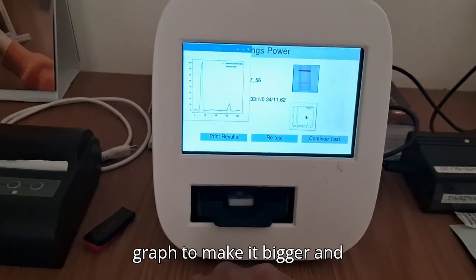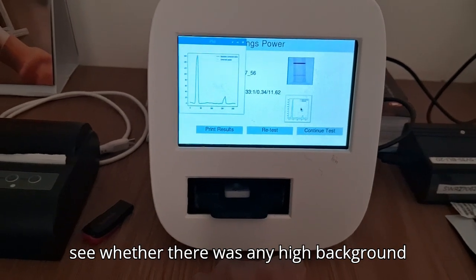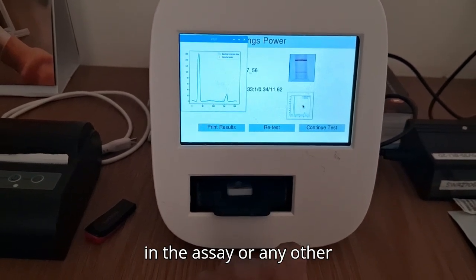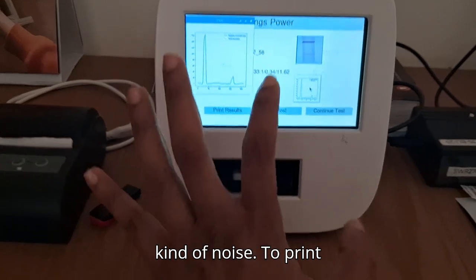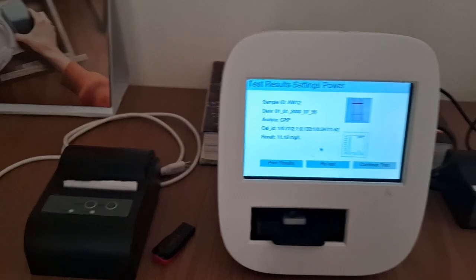You can click on the graph to make it bigger and see whether there was any high background in the assay or any other kind of noise. To print results, we can use a thermal printer.